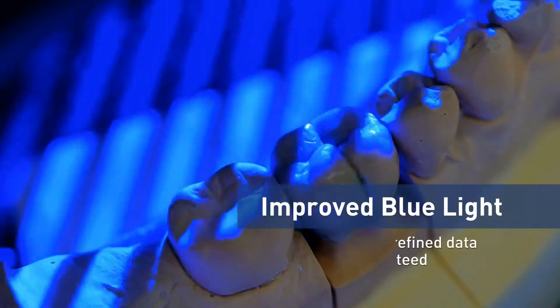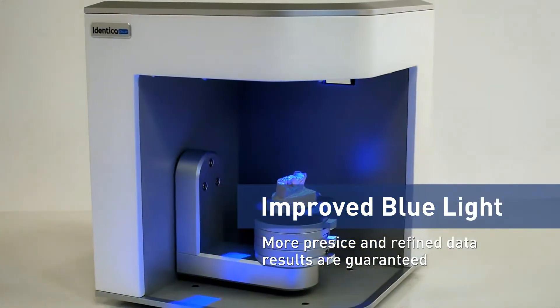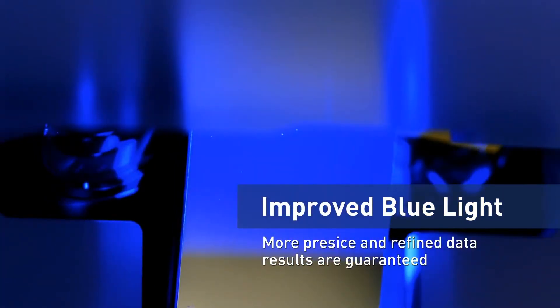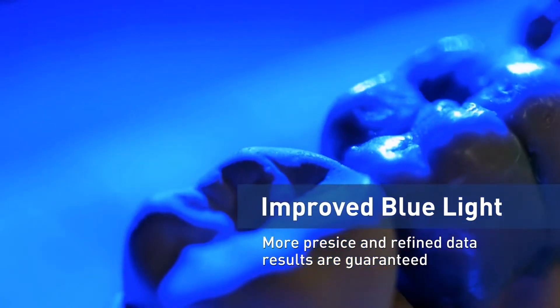Identica Blue 2015 employs improved blue light technology for faster, more refined details of finished scan data. It ensures acquisition of superior quality scan data with precise scans of deep and narrow objects from various angles.